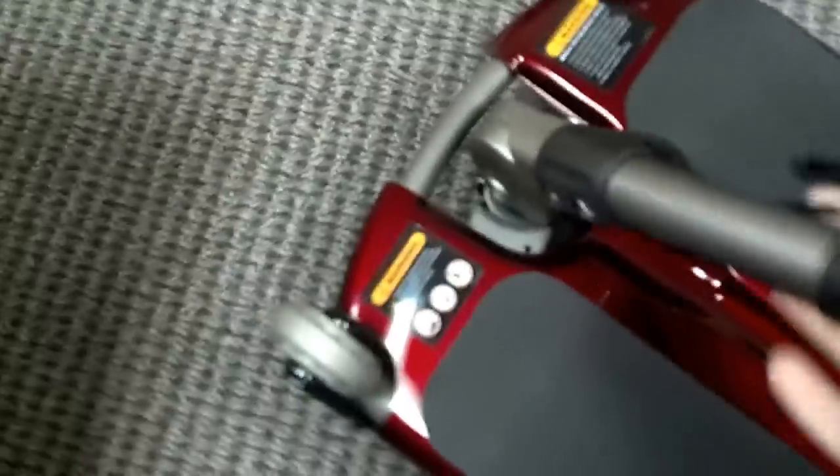It's very easy — you just pop this off, and then the tiller folds down very easily too. It has a telescopic tiller. You just pull back on that and it comes down, and I'm doing all that with one hand. Then all you do is drop the seat, lift up on it, and it folds right on up. What I like about it too is it gives you a quick start guide that tells you how to take it apart, fold it up, and put it in your trunk. Or you can put it in the shell and ship it, or you can pull it along.